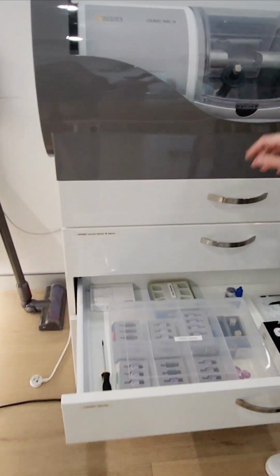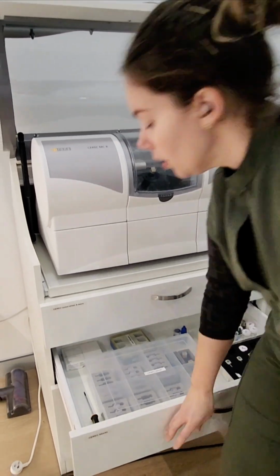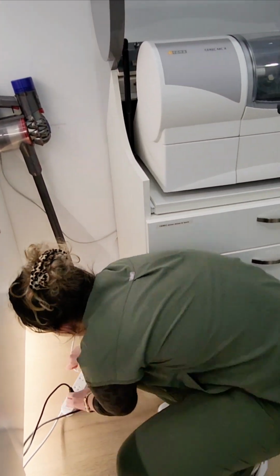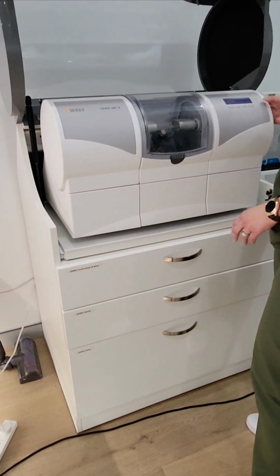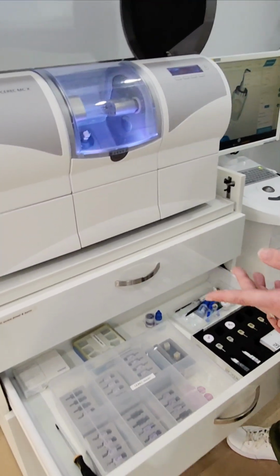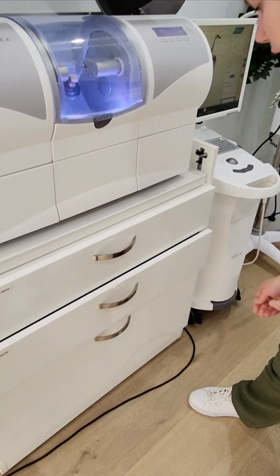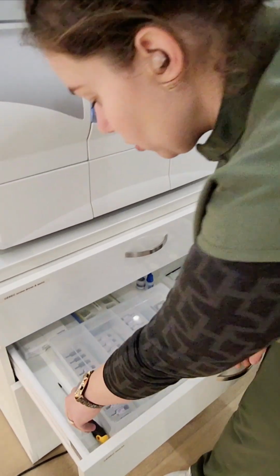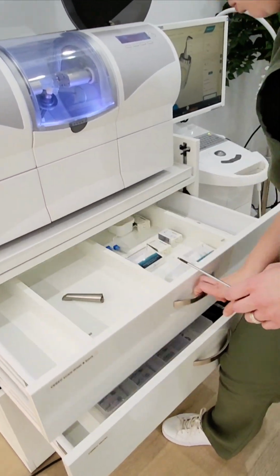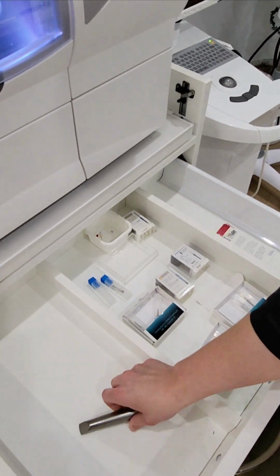Or should I show you this first while we're in this room? So this is the plug. This is where you plug it in. I usually unplug it because if it's plugged in and turned off, it makes such a loud noise. So I just don't know if I'm using it. Yeah. Here's the screwdriver. If you ever need to change burrs, they are here. There's a spare one of those.